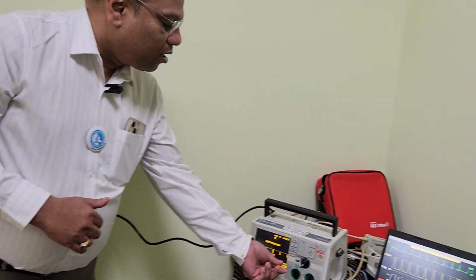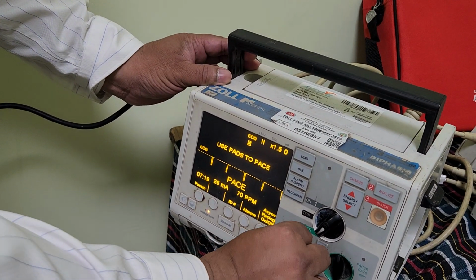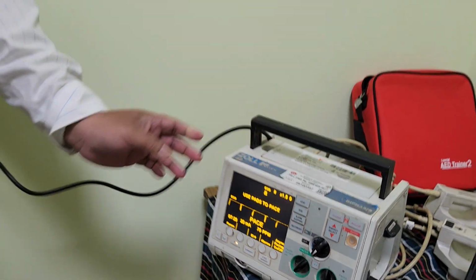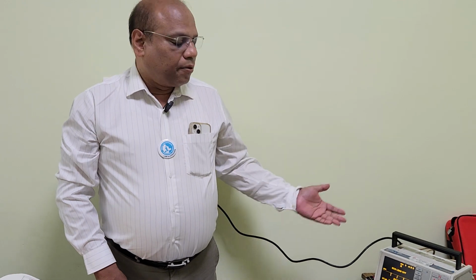So the student again needs to be asked, okay, let us increase the current output. Once the current output is increased by controlling this knob, the student should be told that usually we should start moving the knob slowly from 20 milliampere onward, and the student should do it in succession of 5 milliampere, then looking at the monitor for 5 seconds. In the meantime, the instructor should be ready with the sim pad to change it to a different rhythm.